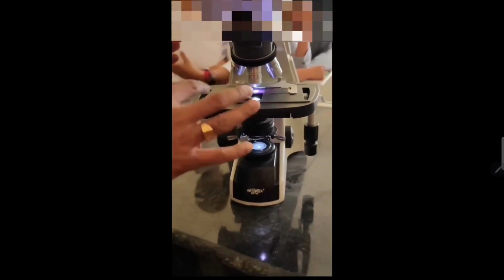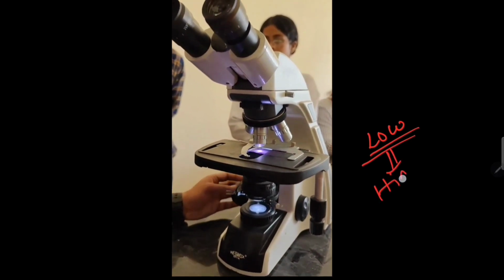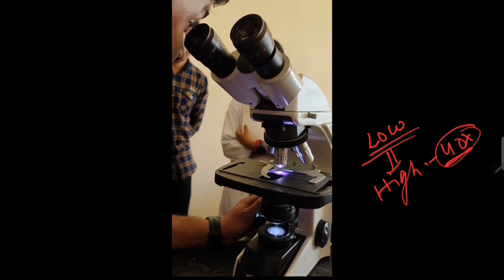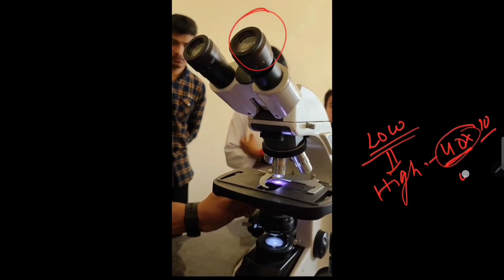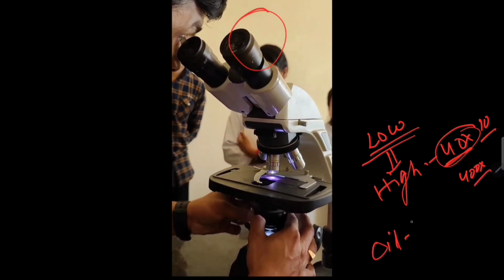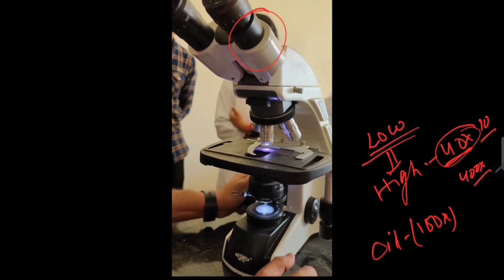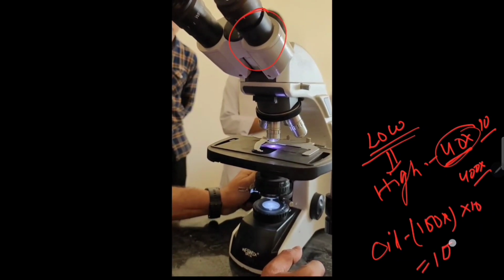It's around 40x high power. So first is low power. We should see whether the cell distribution is okay or not. Then high power, and high power is called 40x objective lens power, and obviously this 10x is always there. So 40 into 10, 400x total magnification will be. Then finally we use oil immersion, which is the 100x objective lens, and that will be 100 into 10. So total magnification will be 1000.